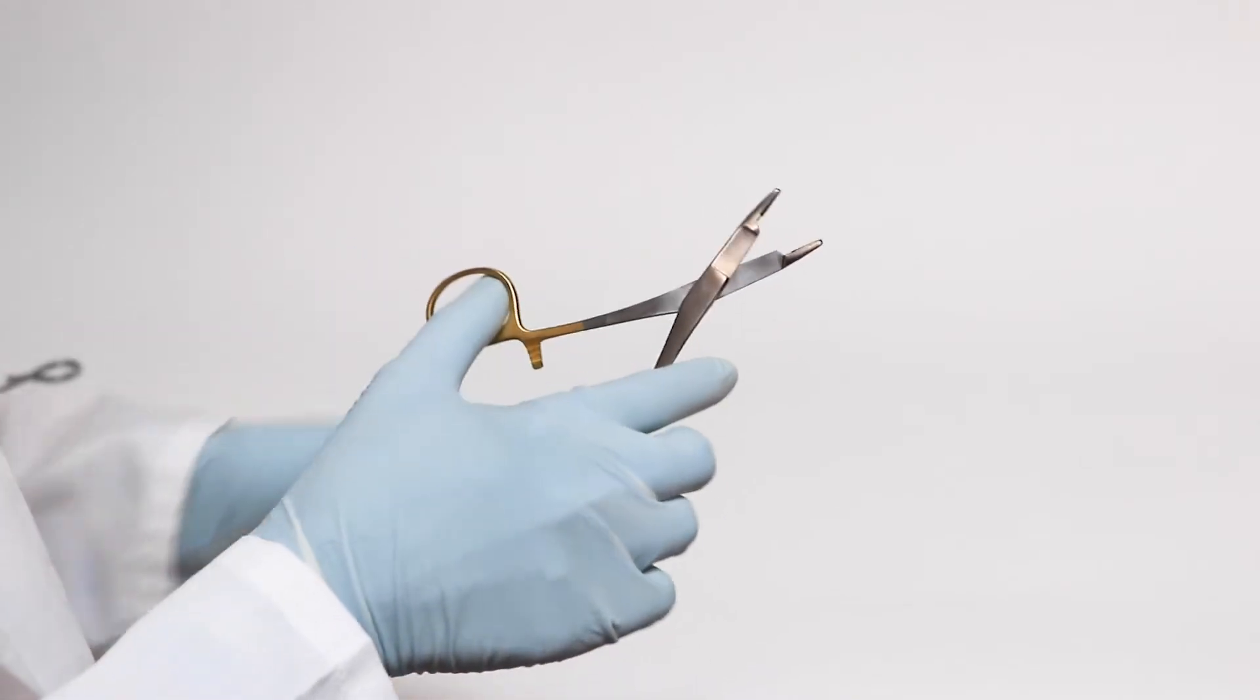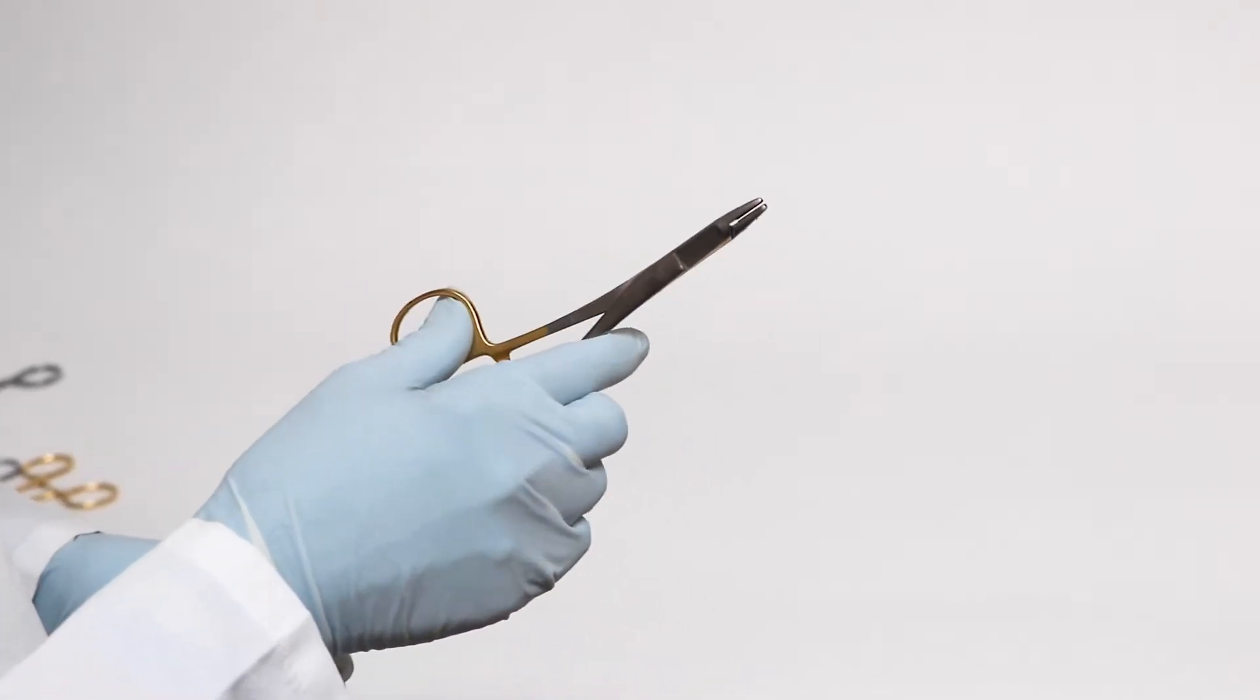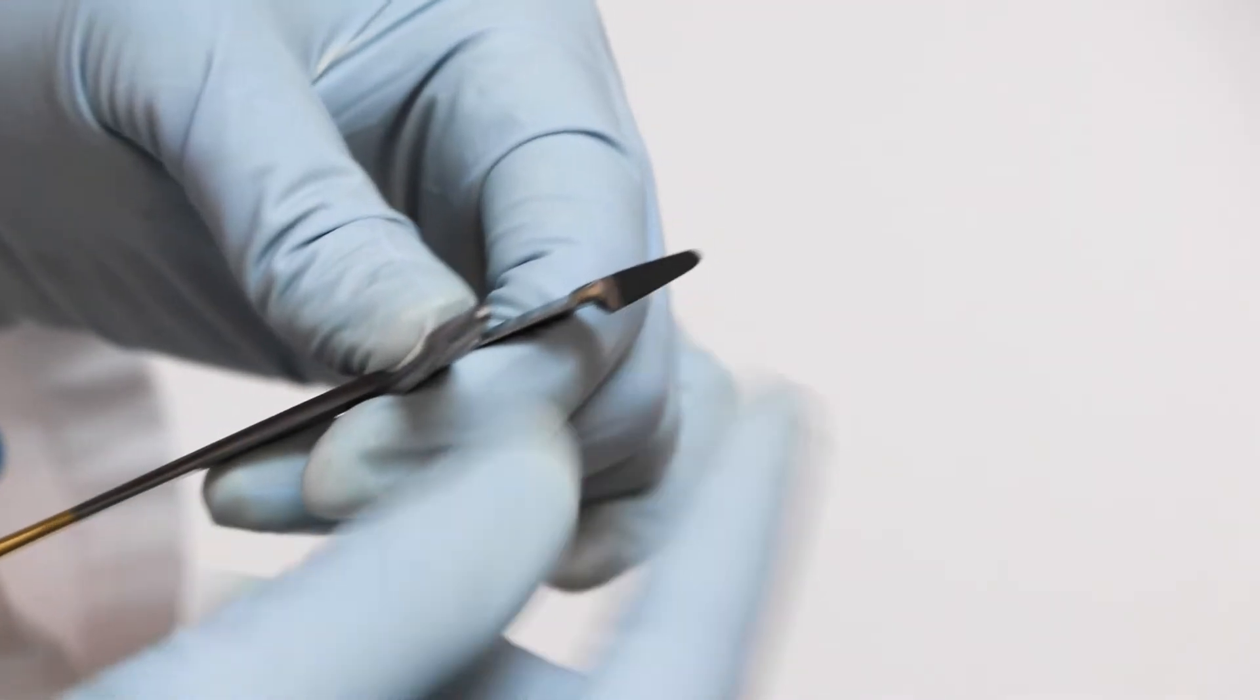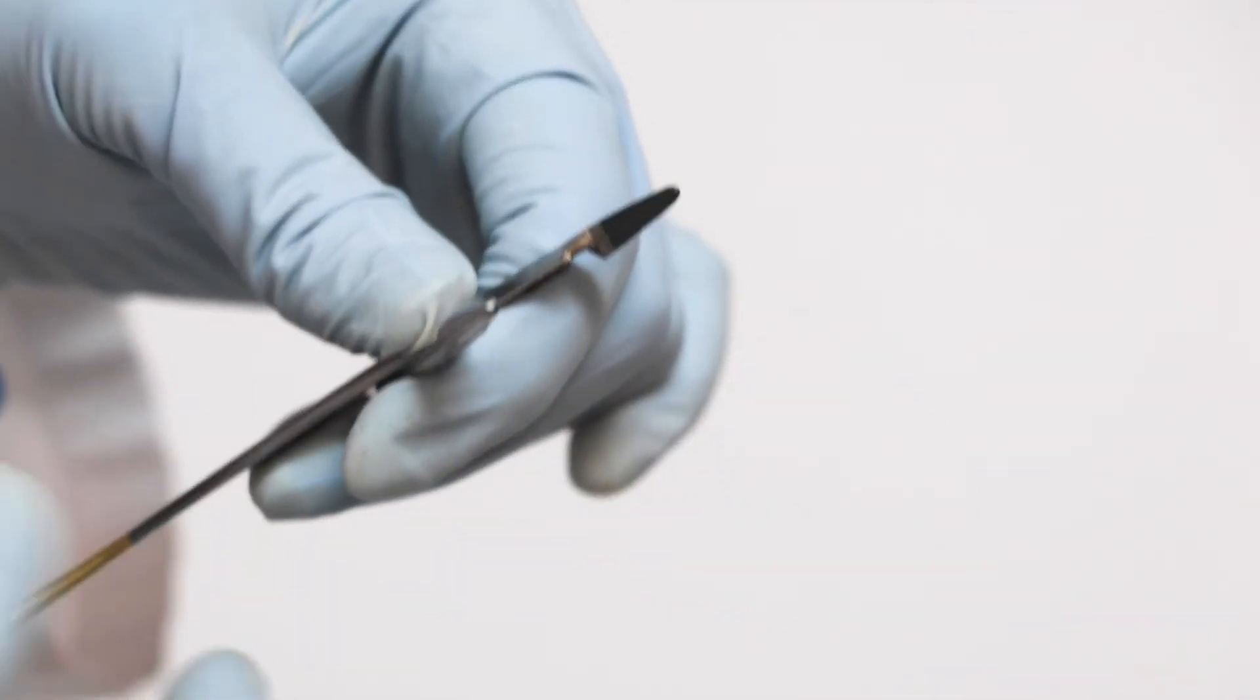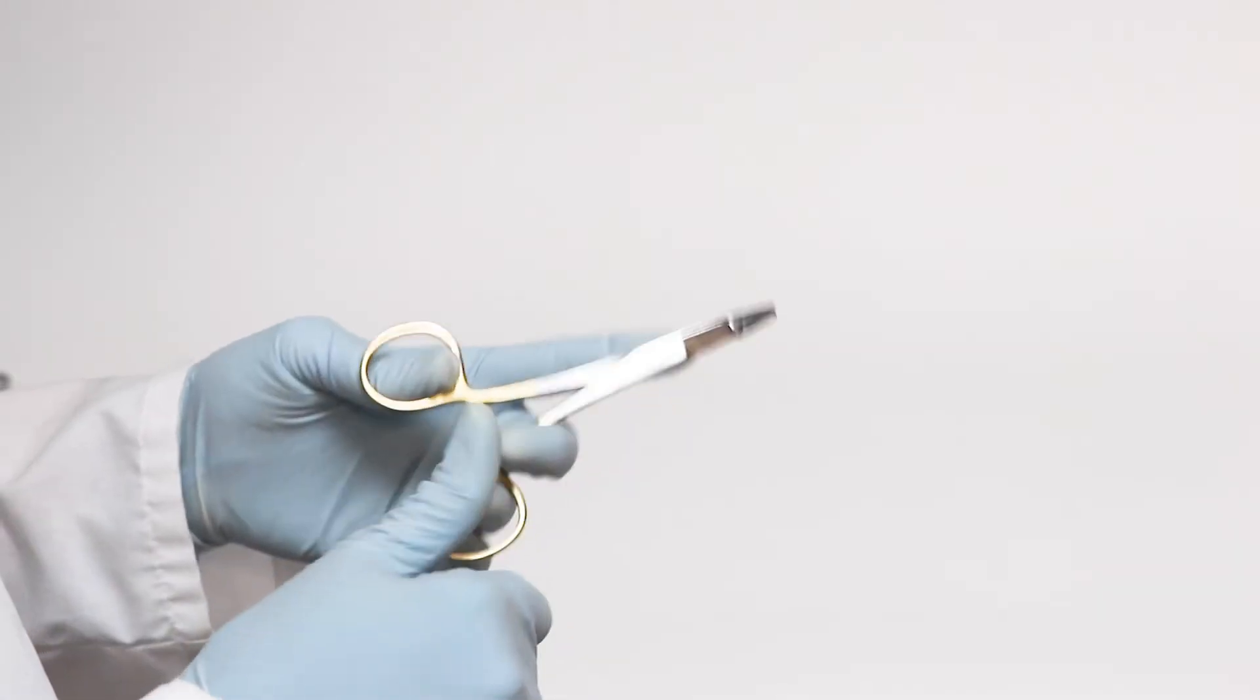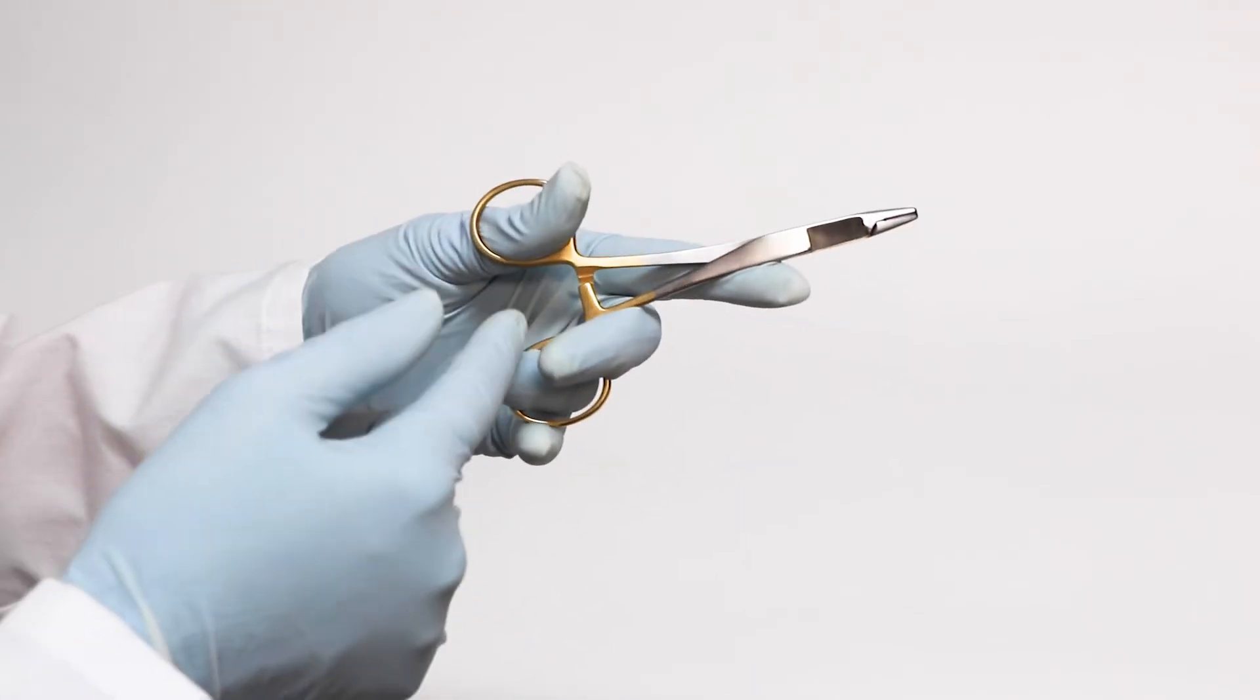The tungsten carbide inserts at the tip add strength to the instrument and ensure a longer effective life of the instrument. The gold handles indicate this unit has tungsten carbide inserts.